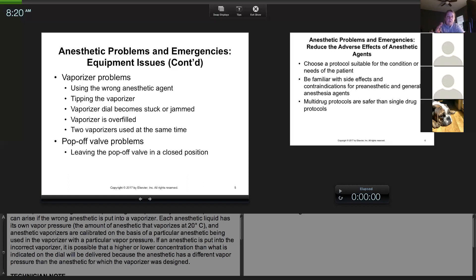In surgery you have that button pop-off — when you ventilate you push the button and squeeze the bag. But when you check the machine, I usually completely close it to confirm it seals, because that button allows a little escape of gas. After leak testing, always make sure you open that pop-off. If your rebreathing bag is getting way too big and getting wrinkles on the side because it's so tight, that's too full — that usually means there's a blockage.